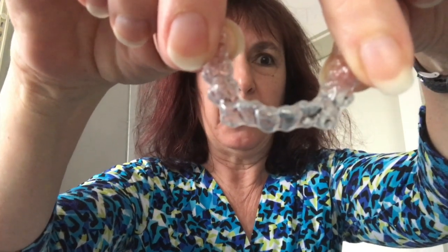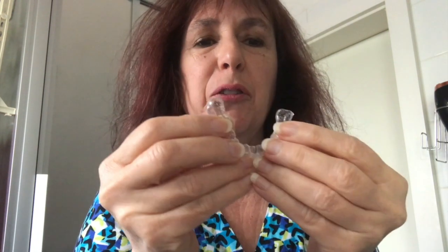So here are the new ones — very exciting — out of 44, so not even halfway there yet. I'm going to put them on. You always put the middle first. I have a problem with these teeth here, so when I put this one on it makes it quite difficult to get on, especially the first time. It kind of gets caught around those teeth and then I have my chewy. There, it's in — it's tight and I always have trouble speaking at the beginning.